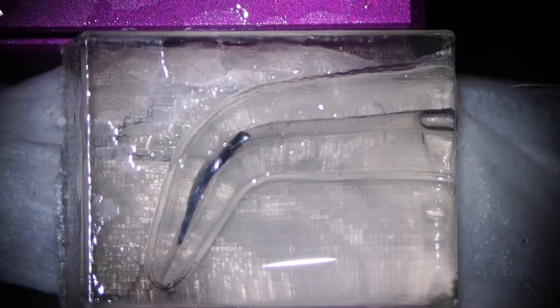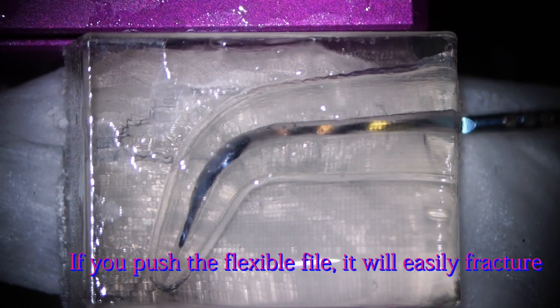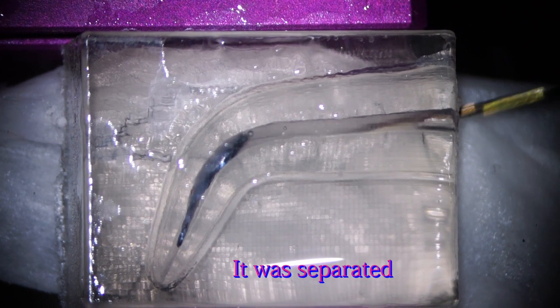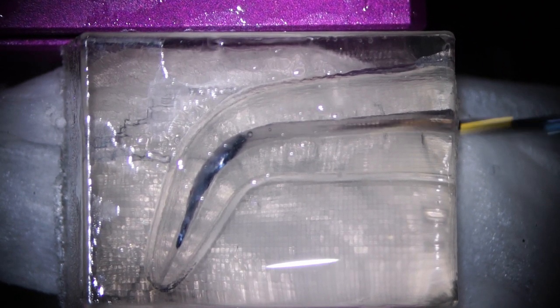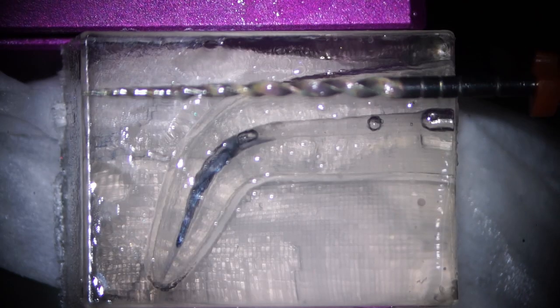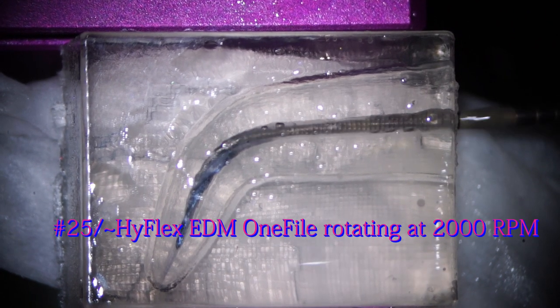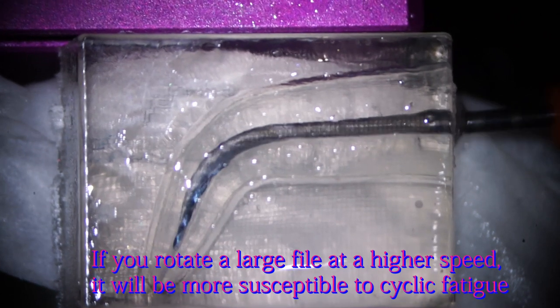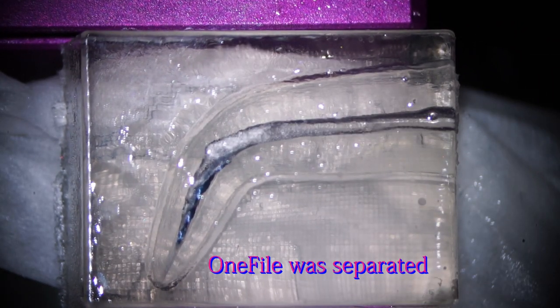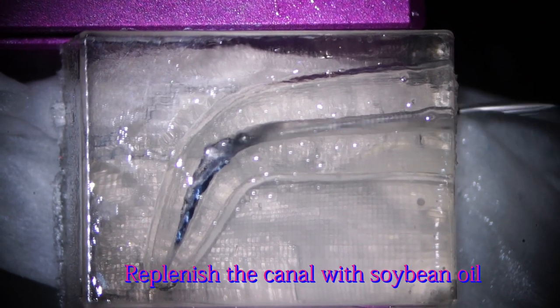First, I like to set the speed to 100 RPM. I'm using a 35-04 HIFLEX CM instrument. Now I broke it. Now I'm going to set the speed to 2000 RPM, then use an up and down motion. If you rotate a big instrument at high speed like 2000 RPM, you can easily break a big diameter instrument.